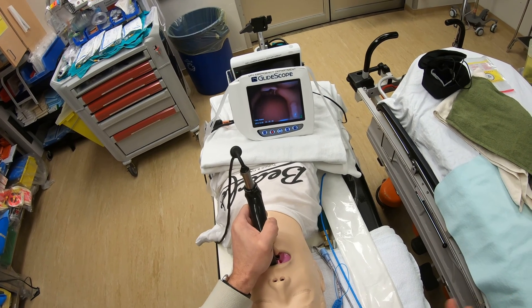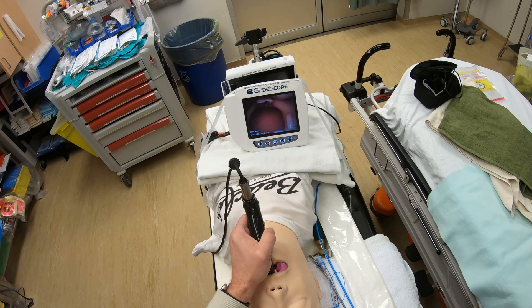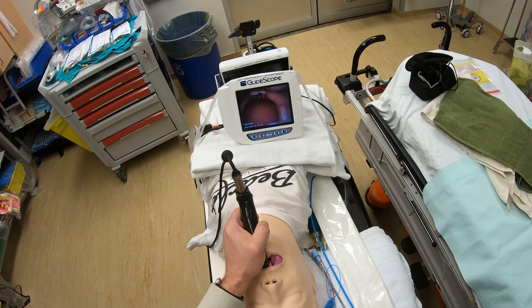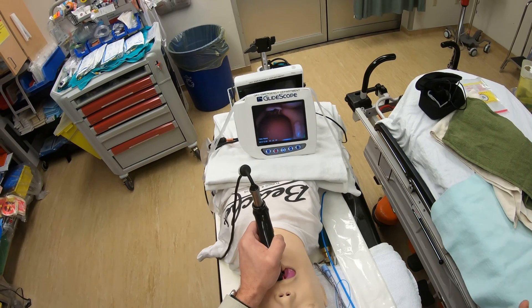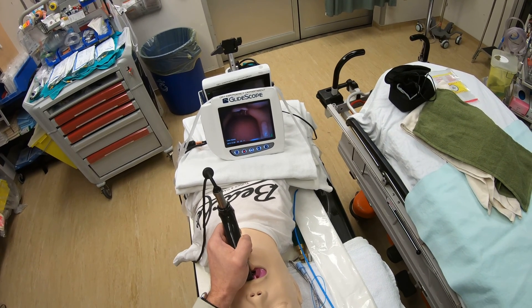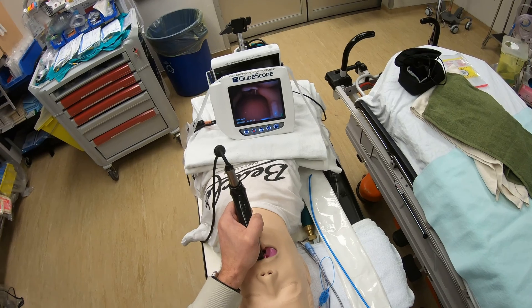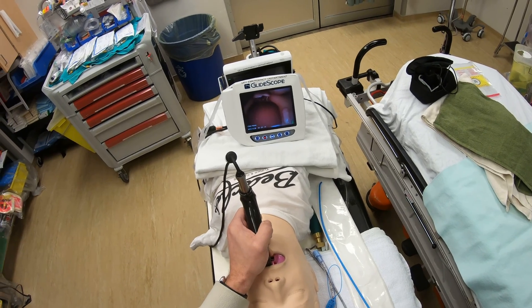Those are the key principles with hyperangulated video laryngoscopy. Do this stuff routinely and you won't run into an issue.